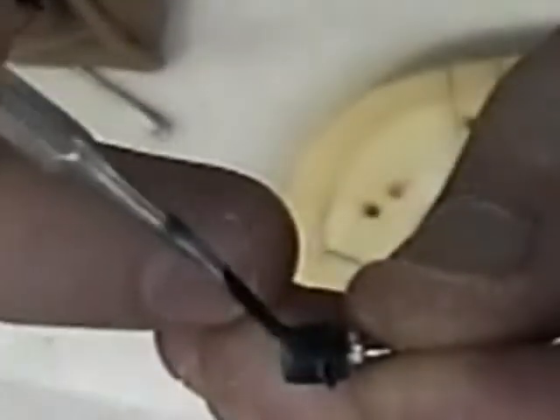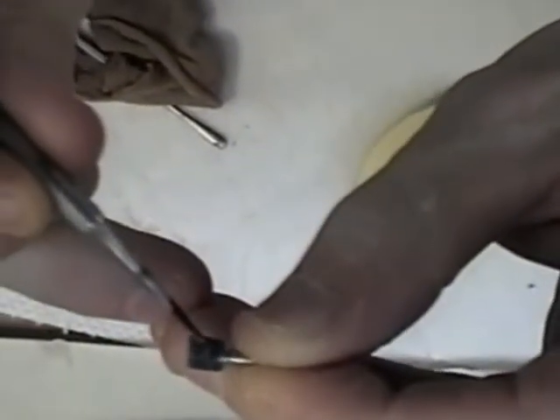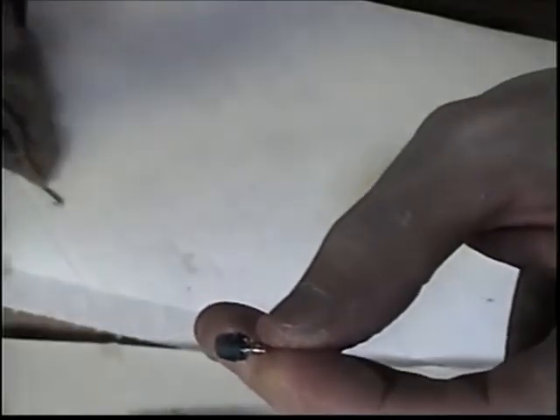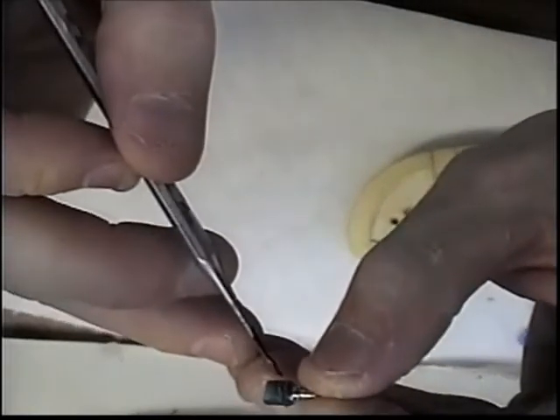Now I'm starting to get some formation of a margin here, and I will need to bring this down subgingival, especially on the buccal area, but again I'm going to wait until that's cast. Now I couldn't get the hot wax to flow evenly all the way to the base when the tissue was in place on the model, so I'm just going to fill in any little voids or discrepancies with wax.